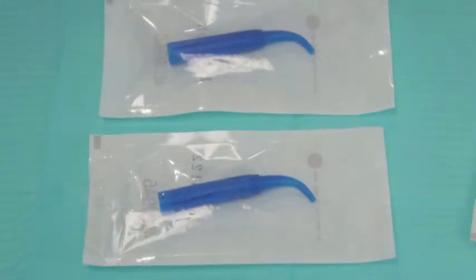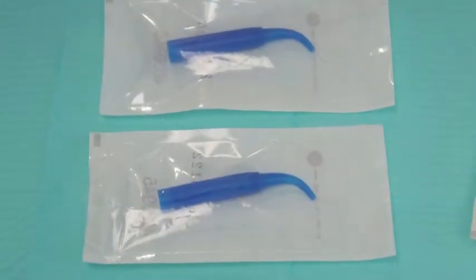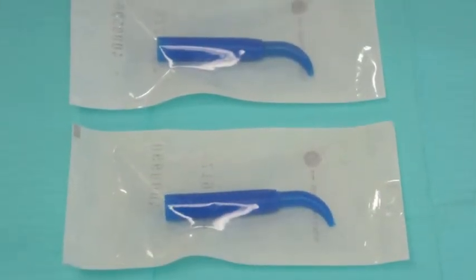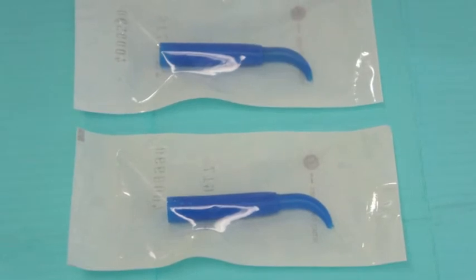Here we see the 45 degree tips which come in 5 and 10 millimeter lengths can be used for gingival troughing and the 90 degrees which have a thicker neck to them. You can tell which tip is which on the back of the package.